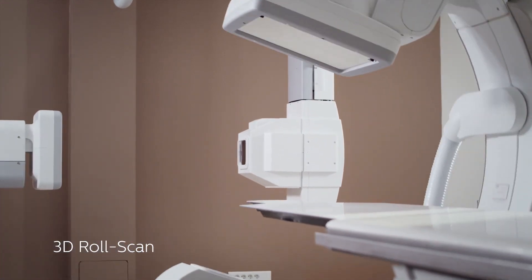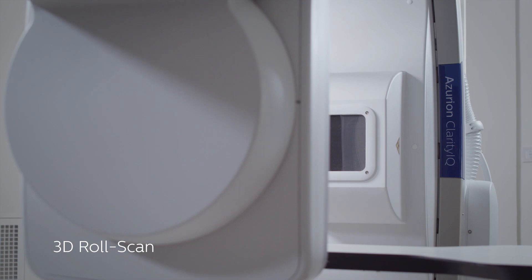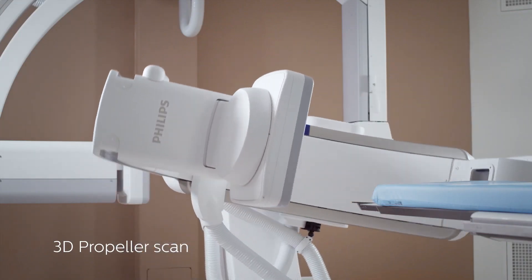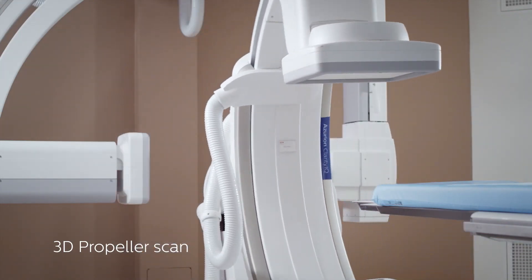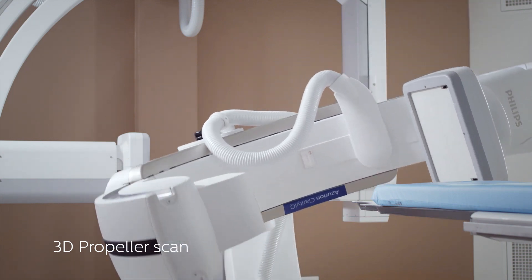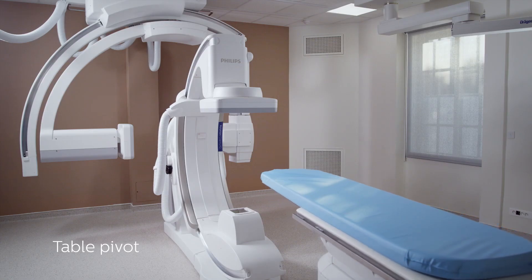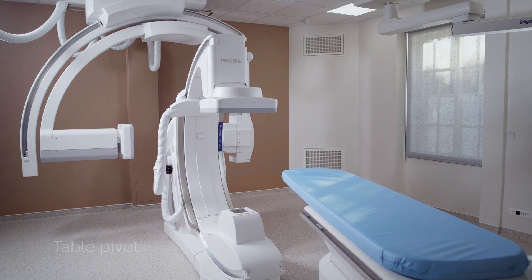However, single plane systems are also capable of 3D imaging. However, it takes longer for the c-arm to move, so the software's reconstruction process can cause a delay. Biplane systems come with 3D software standard while it must be added to single plane labs.